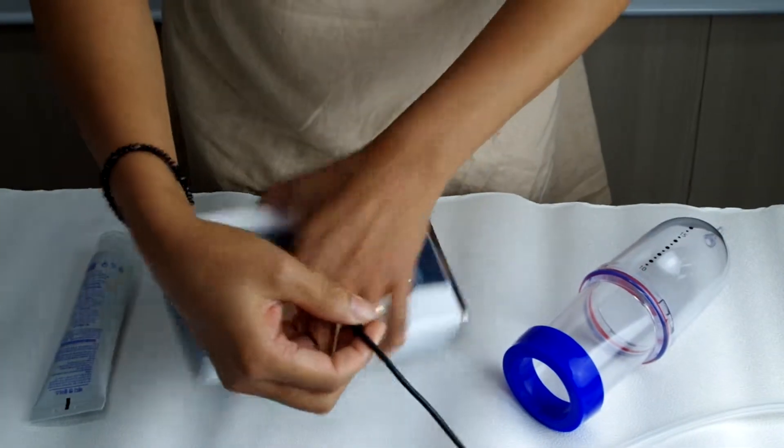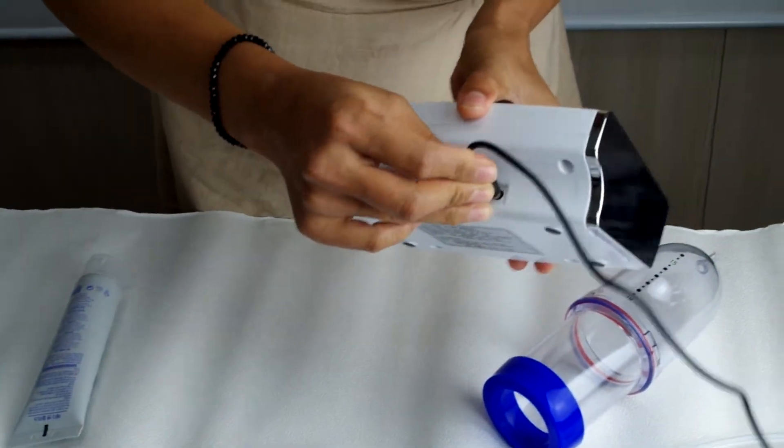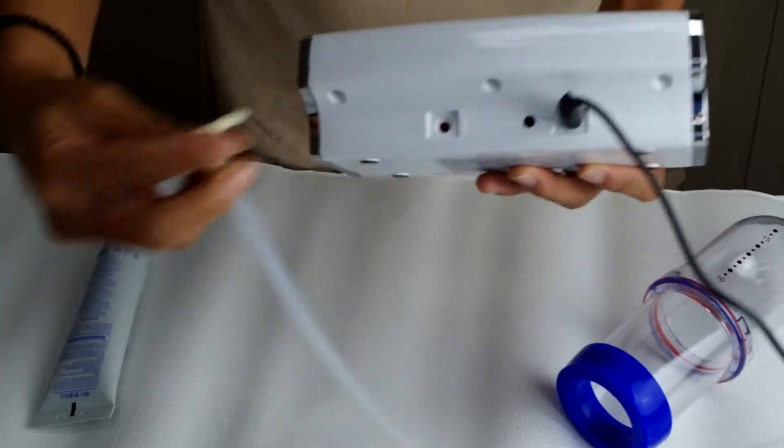Turn on the power. You have to connect the power and the hose.